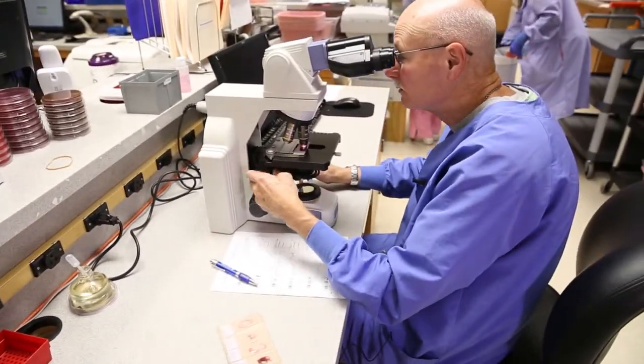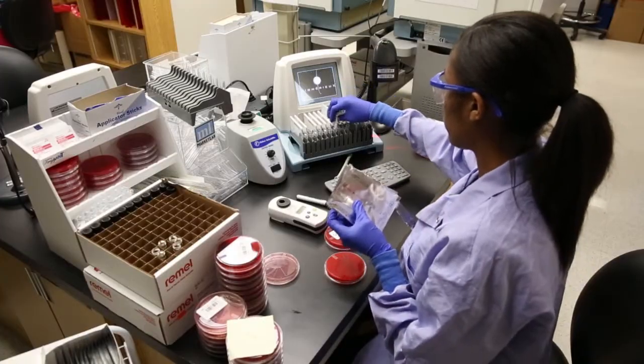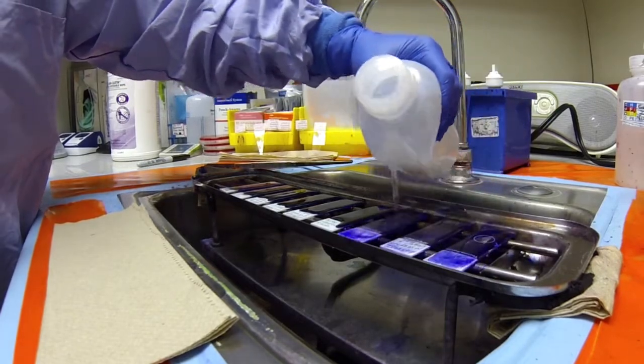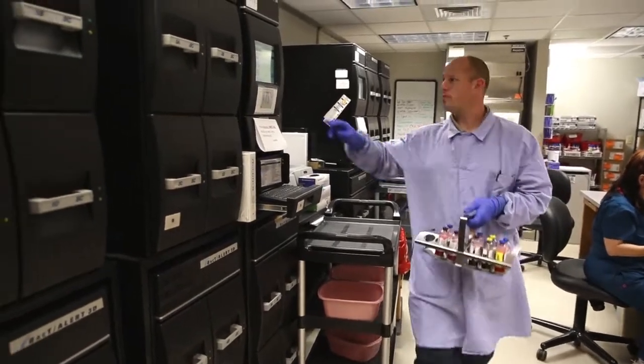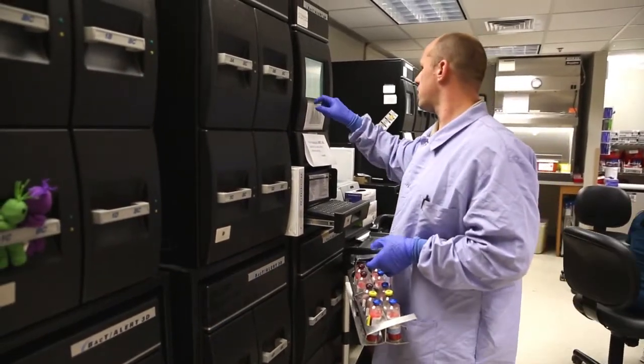It wasn't until relatively recently, with the advent of things like liquid microbiology, that microbiology became more amenable to automation. If we can gain a half a tech by the technology we implement, that's a win-win for everybody.